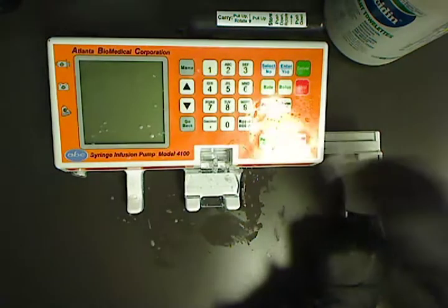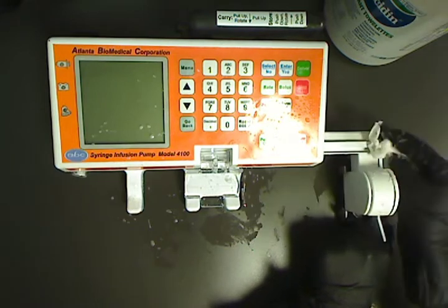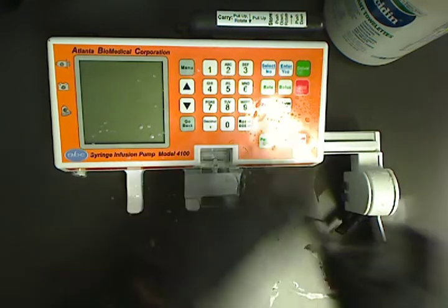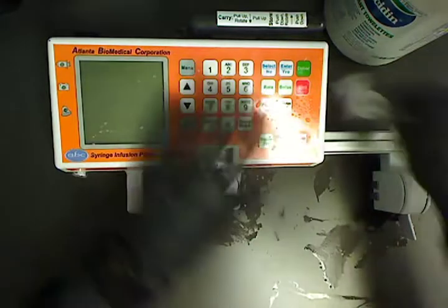Make sure you clean all the surfaces - the front, the top, the back - and then also clean the track.